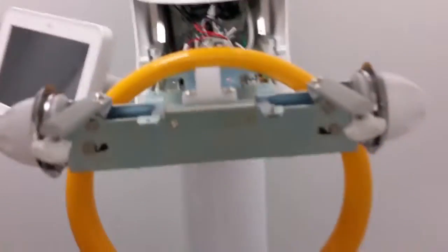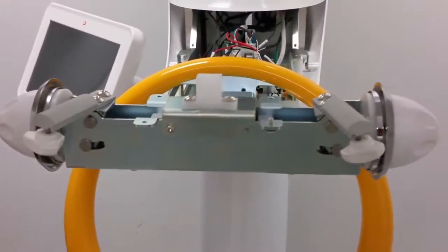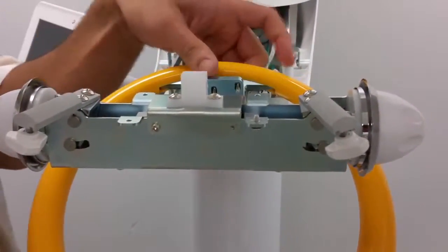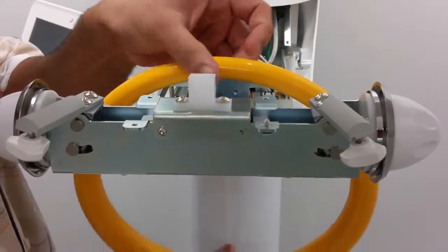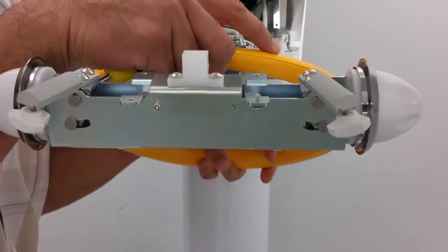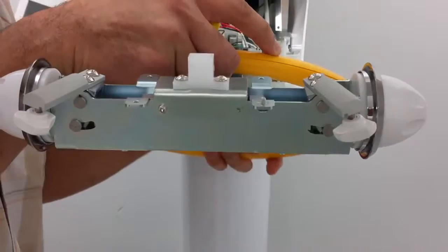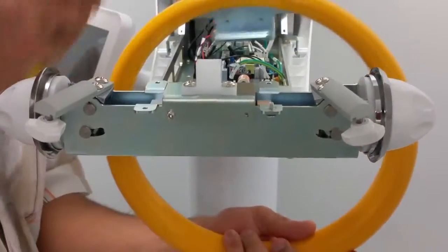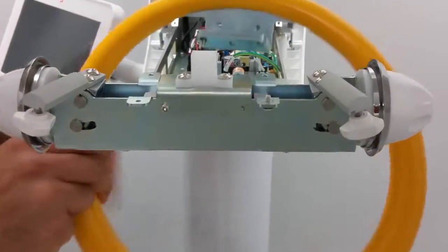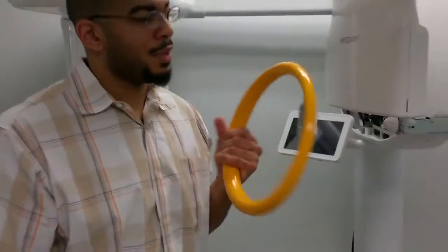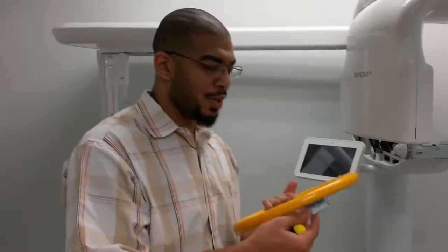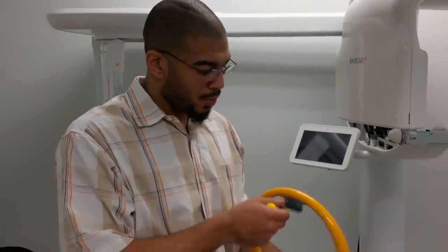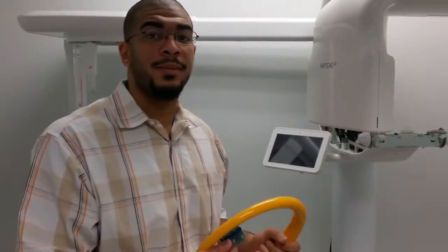Here, now the ring is free. Reverse order to put the o-ring back on and we're replacing the unit. Thank you.